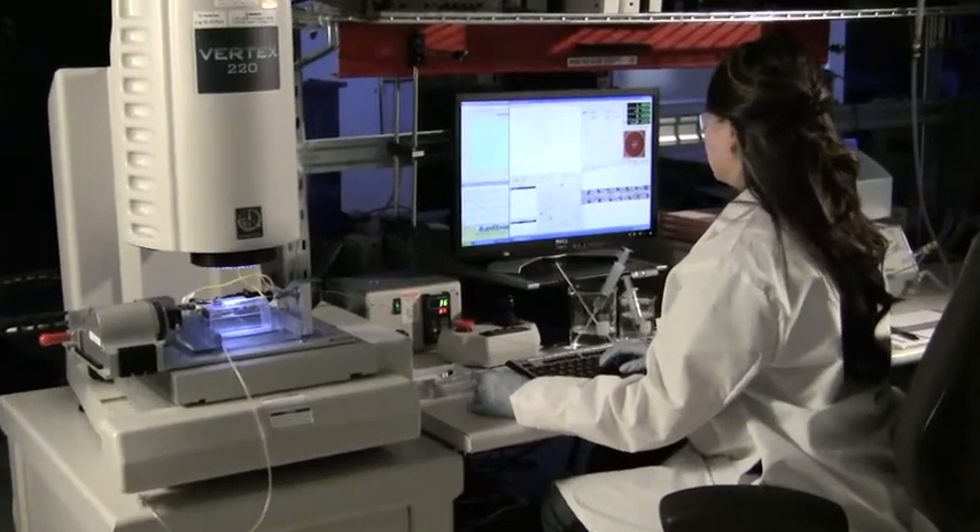These tests demonstrate that the Integrity bare metal stent with continuous sinusoid technology maintains excellent mechanical properties for today's challenging interventions.